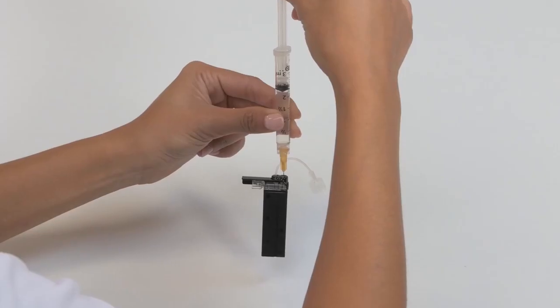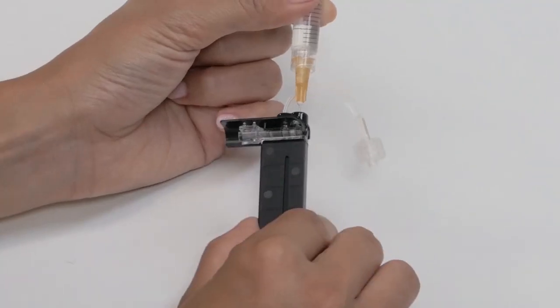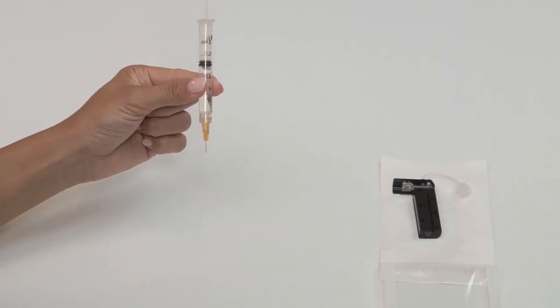You'll probably see some bubbles during this step. With the needle still in the cartridge, gently release the plunger. Air pressure will pull it back to a neutral position but will not push any air back into the cartridge. Now you can remove the needle from the fill port. This step removes any air that may have been trapped in the cartridge bag.